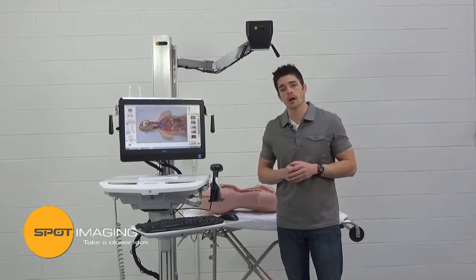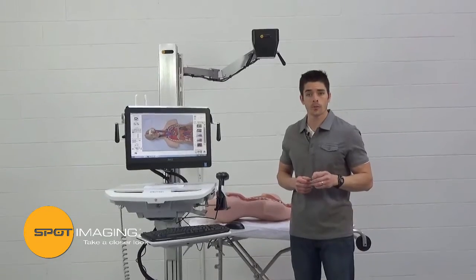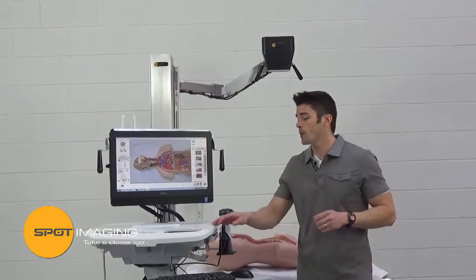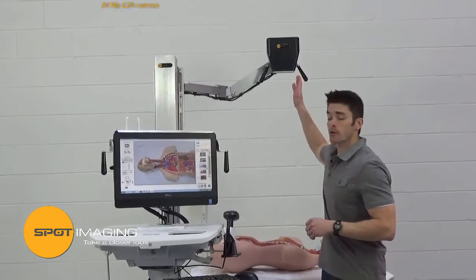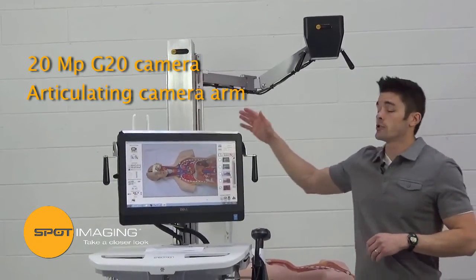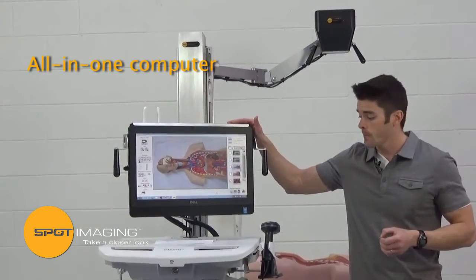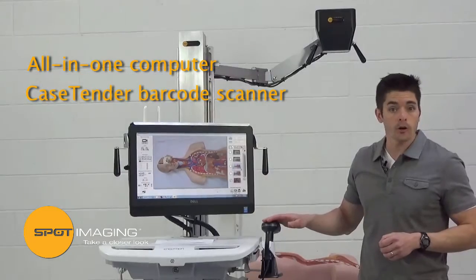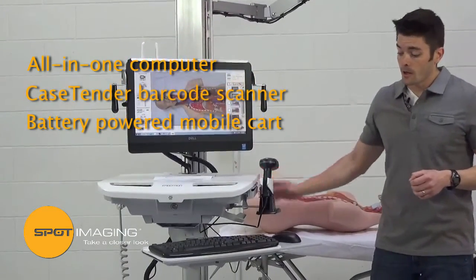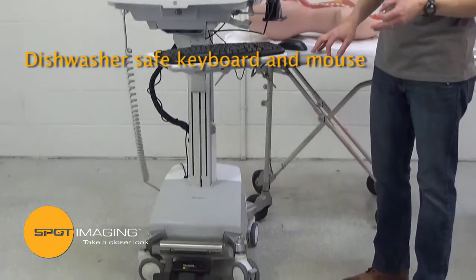Hello, I'm John Tarangio with Spot Imaging, and today we're going to take a closer look at a PathSuite mobile imaging system and how it can provide professional autopsy images. It's equipped with a 20 megapixel camera, articulating camera arm, height adjustable column, an all-in-one touchscreen computer, case accessioning barcode scanner, battery-powered mobile cart, dishwasher safe keyboard and mouse, and our zoom and image capture foot switch.